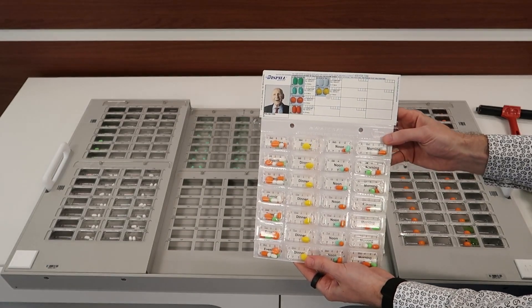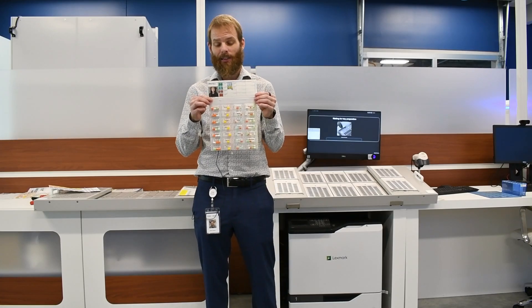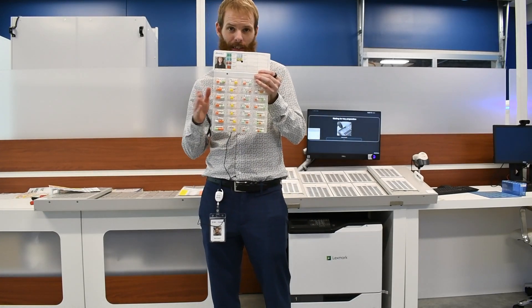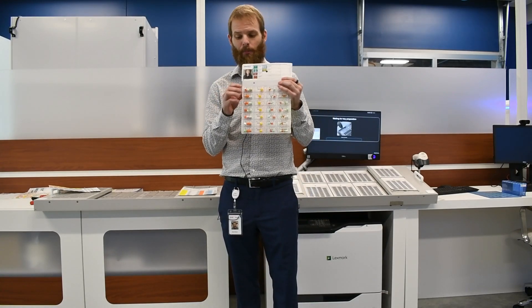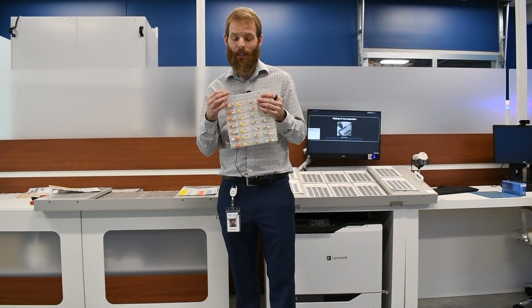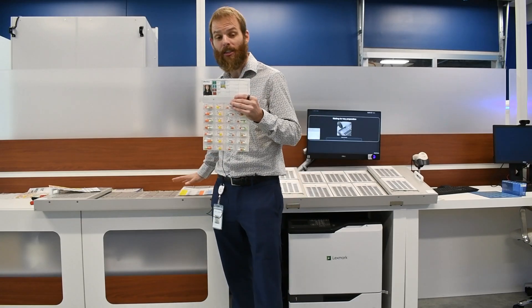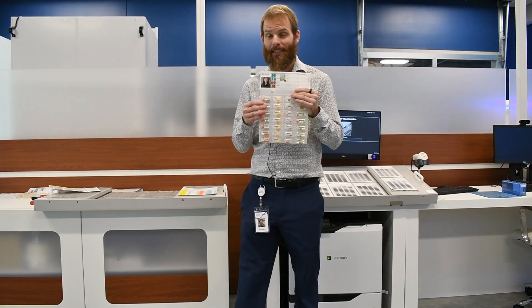One thing we haven't talked about yet is pharmacist verification. With our system there are two primary ways to handle pharmacist verification depending on how you want to drive that activity. The first way is that once the card is filled, it gets handed directly to the pharmacist, who does their full pharmacist verification — confirming that yes, it has atenolol, gabapentin, metformin, or whatever it may be. The other way is a two-step process that includes a technician doing a quantity check at the sealing and verification stage.